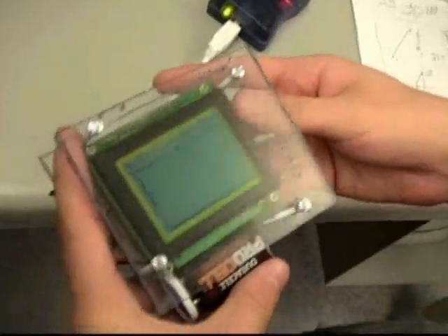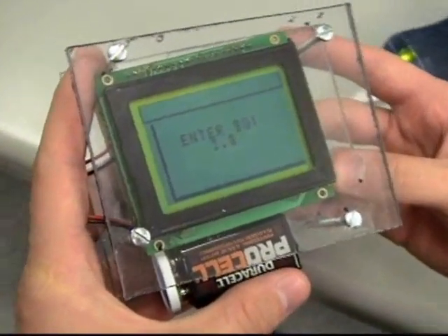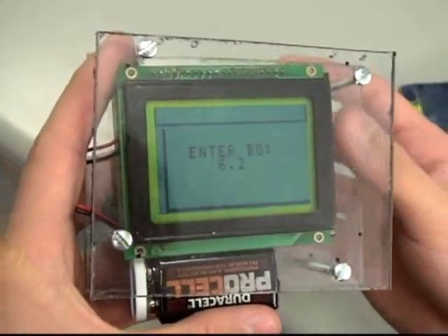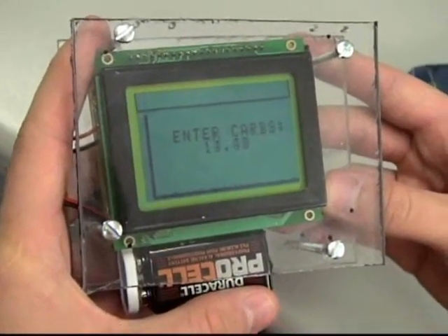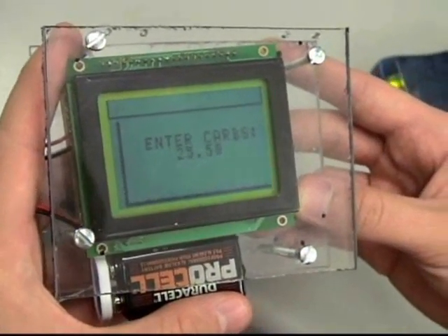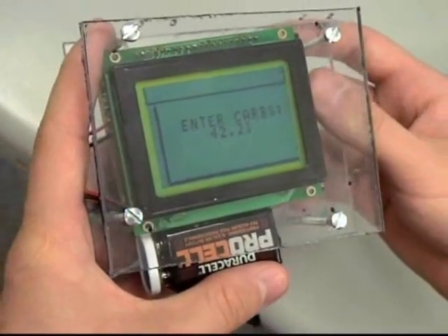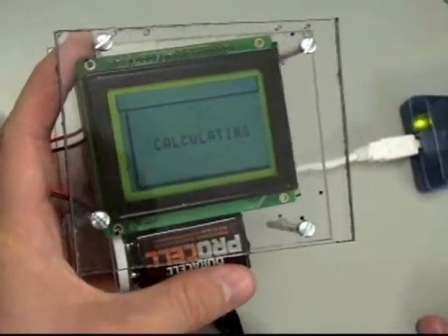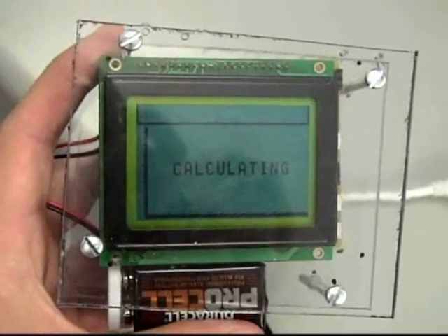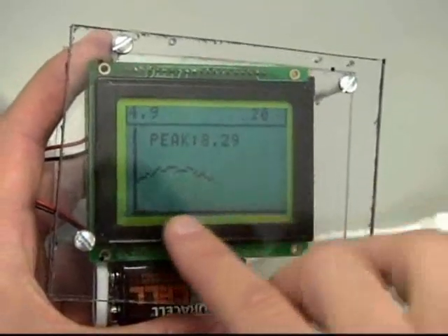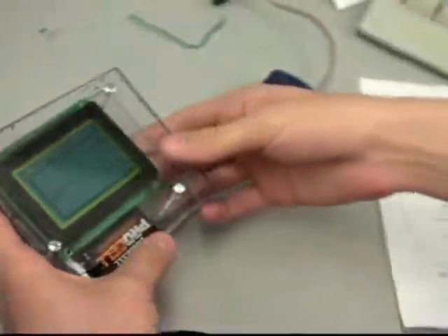We need a prediction, so we're going to enter Charles's data and see how it relates to his actual data. He had 6.3 as his initial blood glucose level, and 42 carbs. It will take a little bit to calculate, then it will plot the values and display the peak time. The predicted peak was 8.29, and there's the graph showing how we predict his sugars to go over the next 30 minutes. Hopefully that will match our actual results.